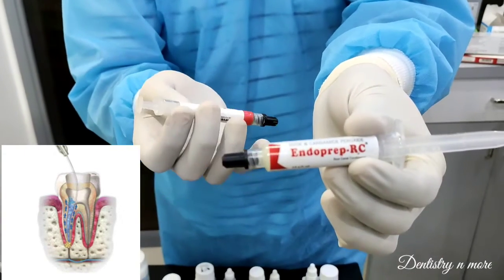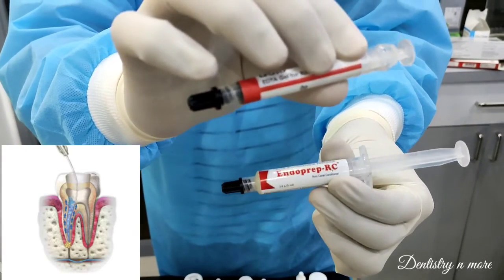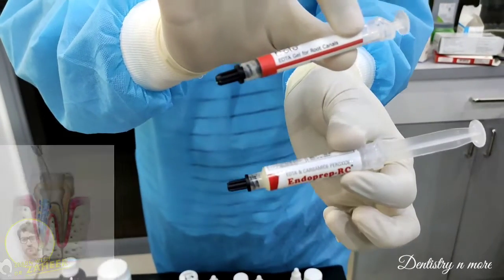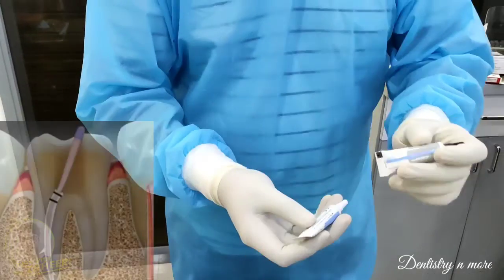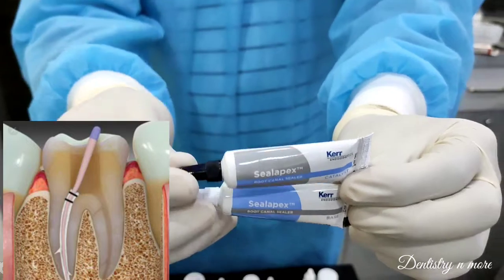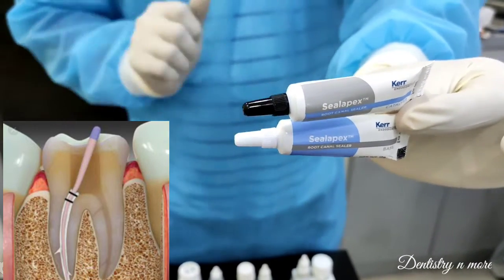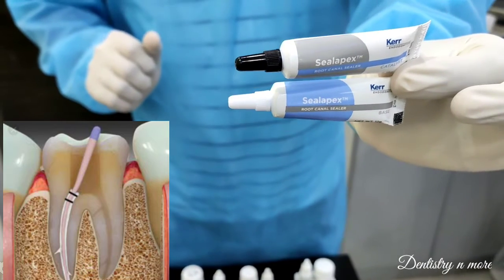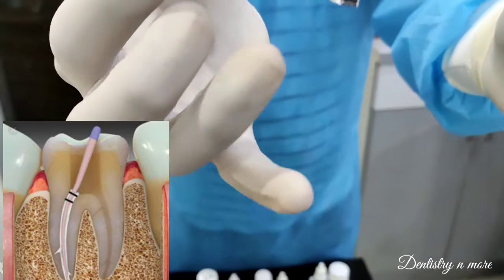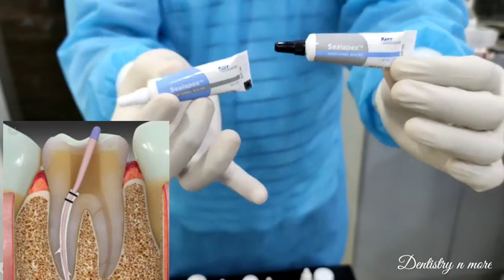Similarly, another brand of EDTA is available. EDTA is a chelating agent used to facilitate calcified canals. Next we have Seal Apex, which also comes as a two-tube base-and-catalyst system. It is a eugenol-free calcium hydroxide root canal sealant used in sealing root canals, which promotes rapid healing and formation of hard tissues.